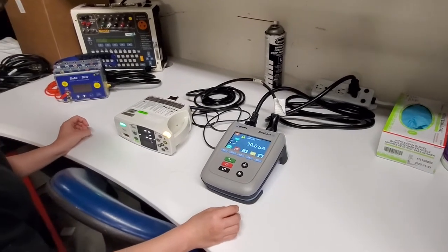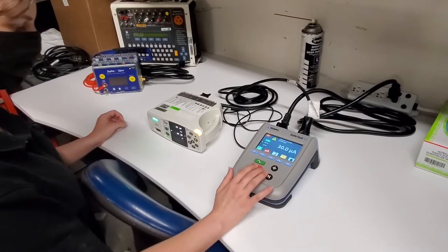30 microamps. Excellent. Too easy. And then you're all done.